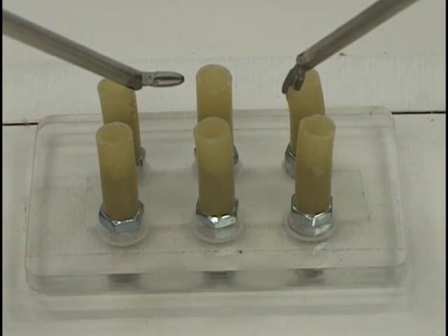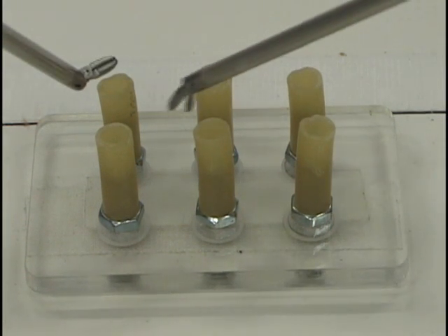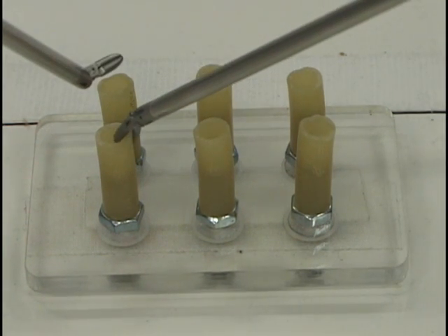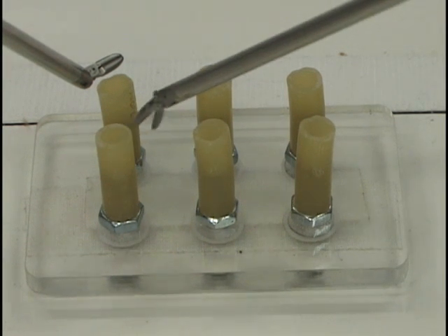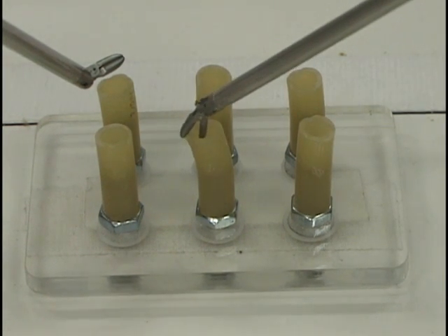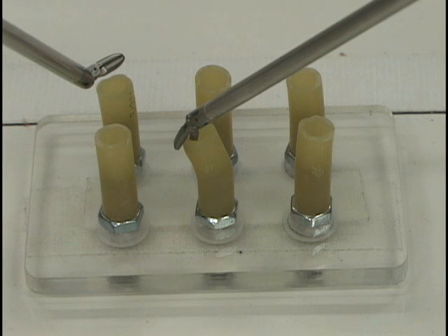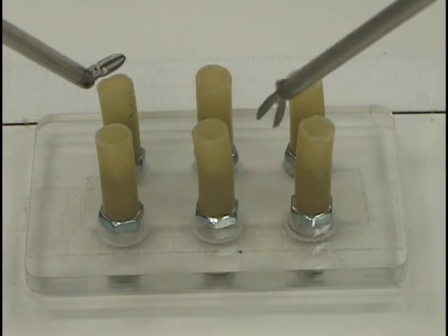You may find the jaws of the tool close as you move and reorient. If the jaws become closed, grasp, then ungrasp to reopen the jaws. Make sure to judge the depth of the jaws before grasping to ensure that at least 50% of the jaws grasp the rubber wall.